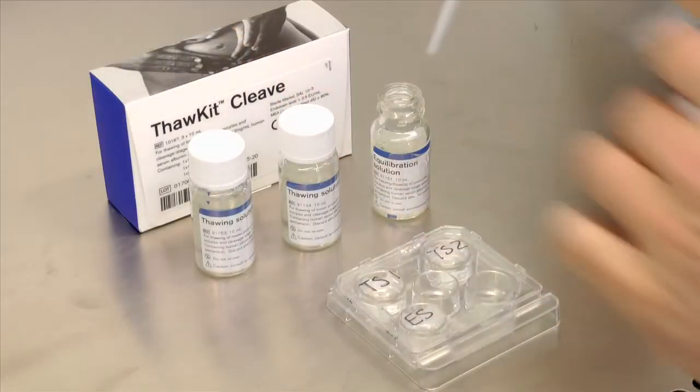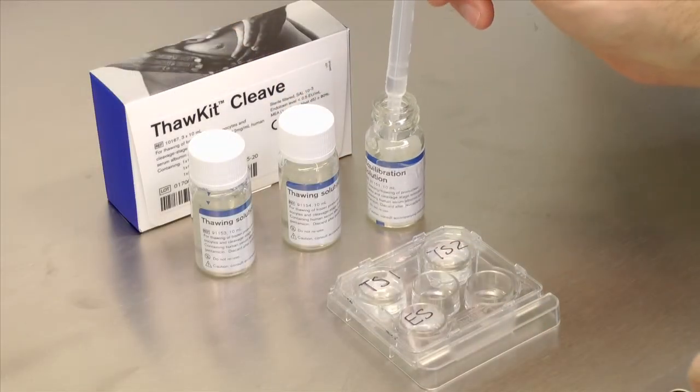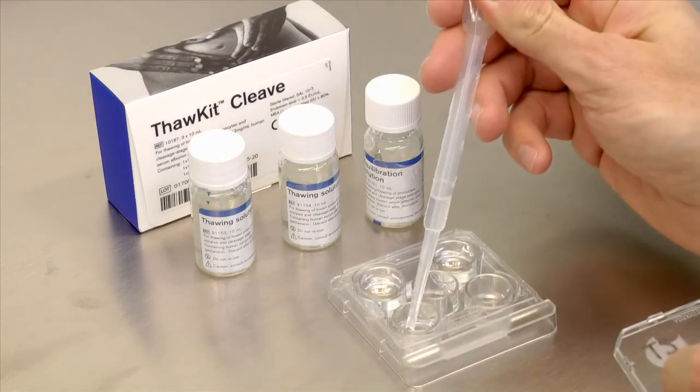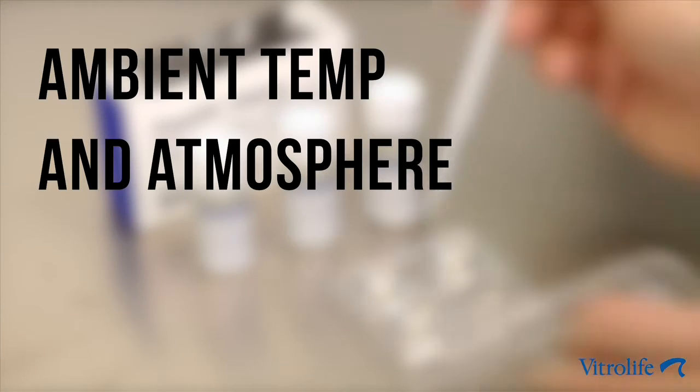Using Thaw Kit Cleave, prepare the dishes with 0.5 to 1 ml of thawing solution 1, thawing solution 2, and equilibration solution at ambient temperature and atmosphere.